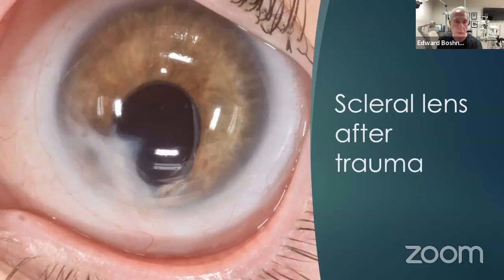So this is an eye of a 5-year-old girl who was working out on an exercise machine while her mother was doing something else. She wasn't being monitored properly, and something snapped and perforated the cornea. She had a retinal detachment. She had a vitrectomy. Her own lens in her eye had to be removed. So this is an aphakic eye, and we fit this eye with a scleral lens. And so this is where trauma comes into effect, where a scleral lens can really help out a patient.